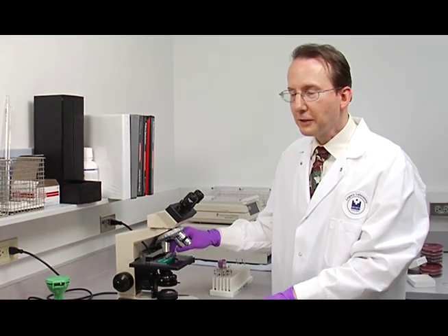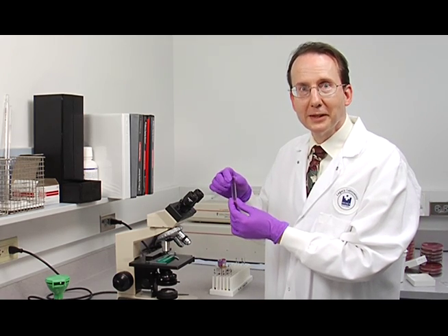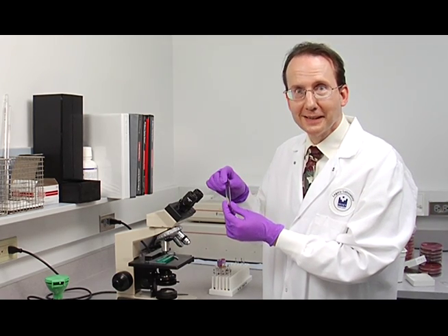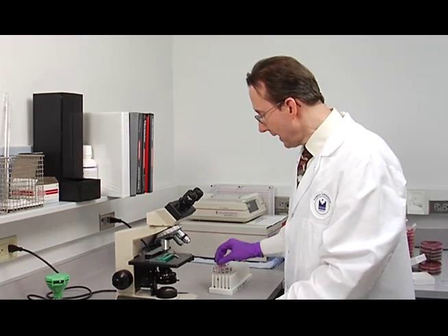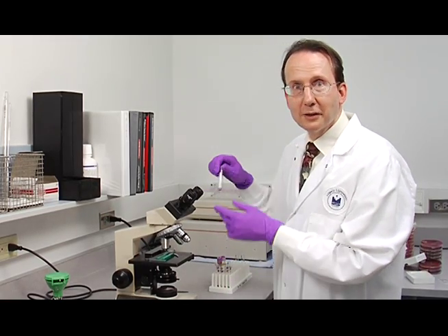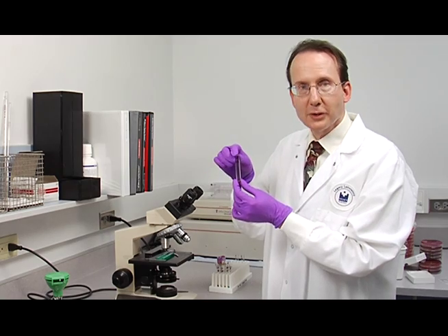Now that we have confirmed the negative on the DU tube, we can record that on our result sheet. And then we need to confirm microscopically the D control.